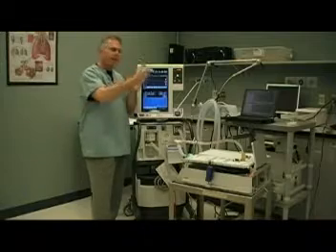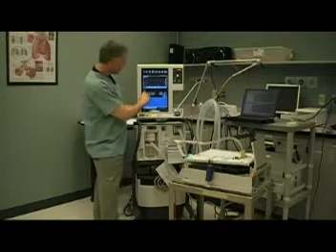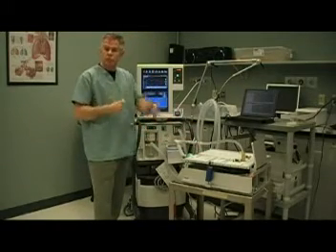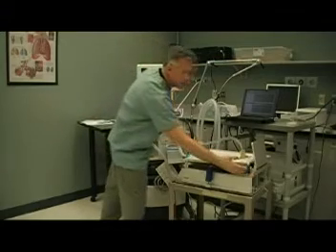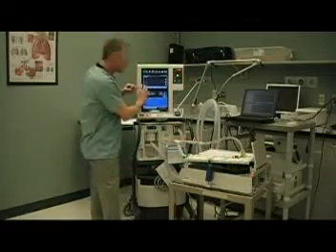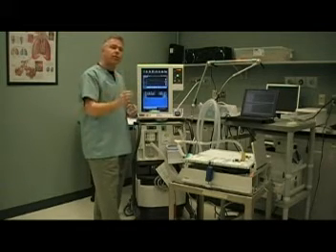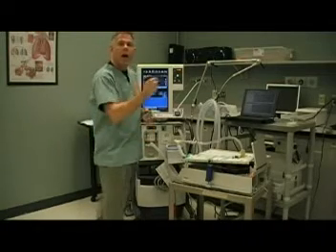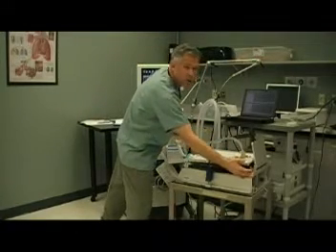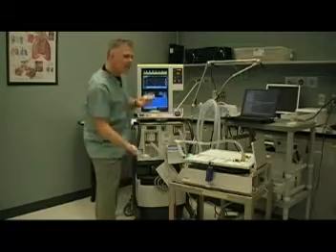It's important to realize that we can allow mandatory breaths. If the patient is unconscious, with a rate set of 12, every 5 seconds the ventilator will give a mandatory breath — so it can be time triggered. If the patient initiates a breath, that's allowed, but the ventilator will deliver preset conditions of a specific pressure held for a specific period of time. That would be a patient-triggered or assisted breath, controlled entirely by the ventilator.